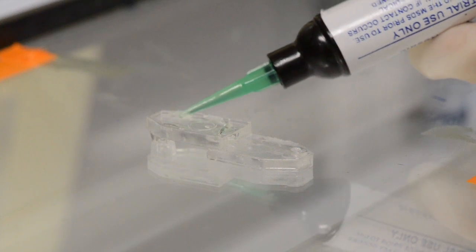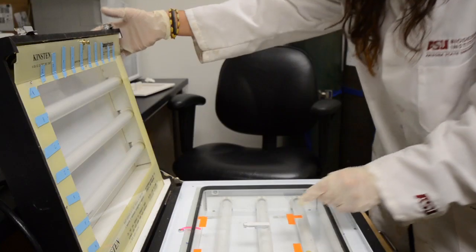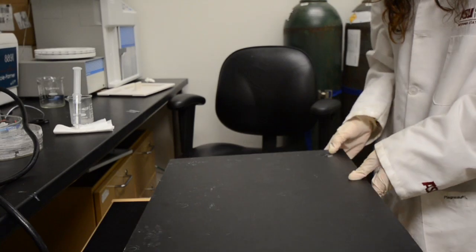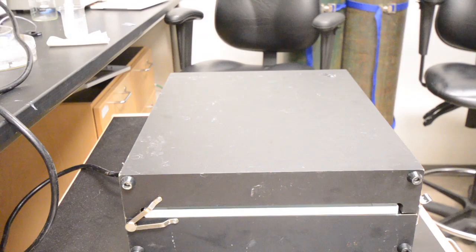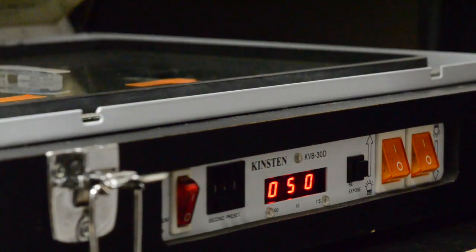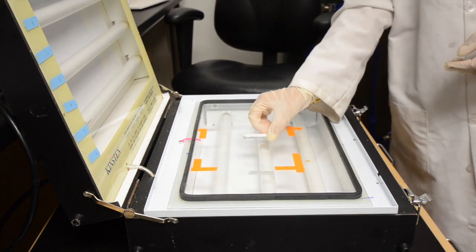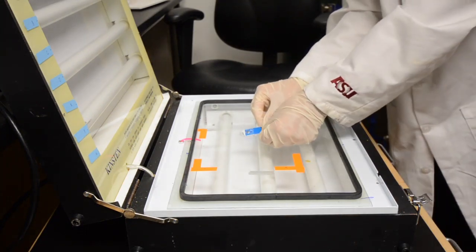So currently I'm looking at several methods of sterilization: there's wet heat, there's dry heat, there's ultraviolet germicidal irradiation, there's autoclaving. We have to test the effects on the actual device and see if it still works and if we get accurate readings, because it can make it all funky, especially since you have an enzyme in there and enzymes are delicate.